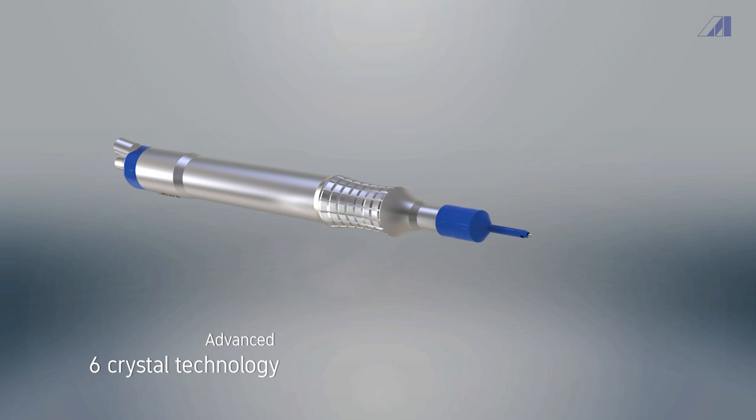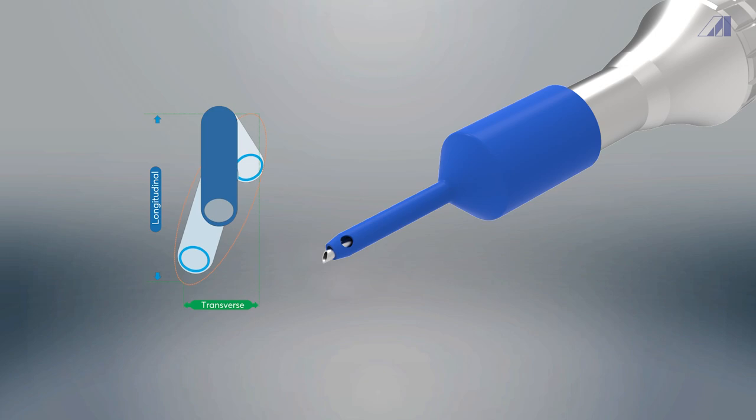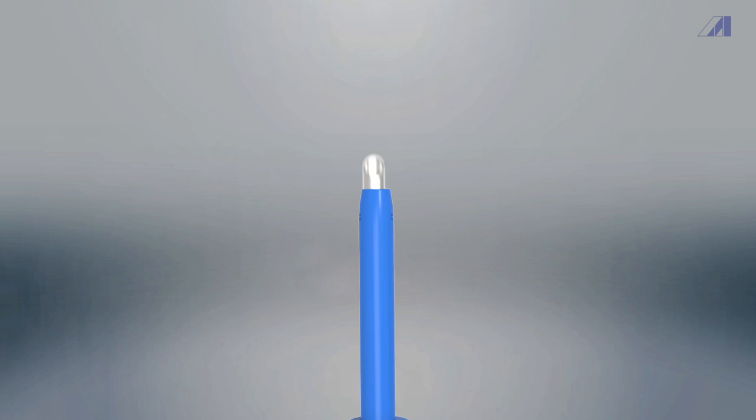This handpiece is engineered with advanced six crystal technology which produces massive amount of energy and helps to maintain uniform stroke length allowing more accurate and consistent delivery.